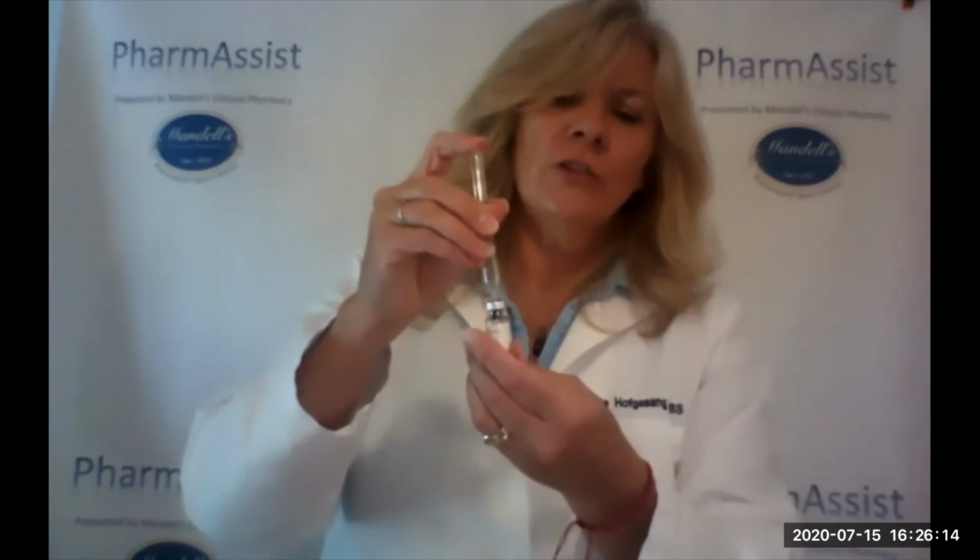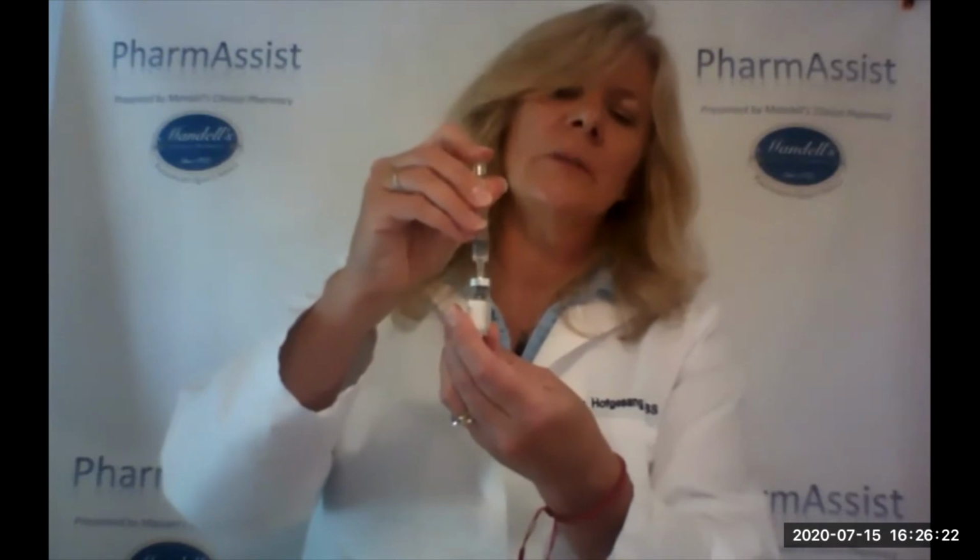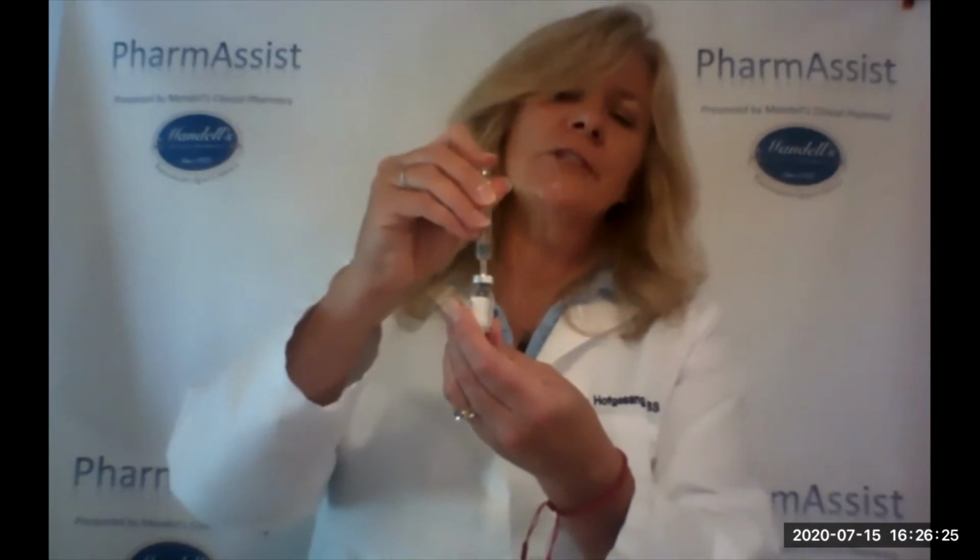Then our next step is to take the injection pre-filled sterile water and uncap that needle. And what you're going to do is poke that needle through the center of that vial where there's a rubber stopper, and you're going to gently push the solution of that water, and do it gently because the vial will have little bits of bubbles. It may actually, with that powder in there, be a little cloudy at first, but what you want to know is it's going to clear up.